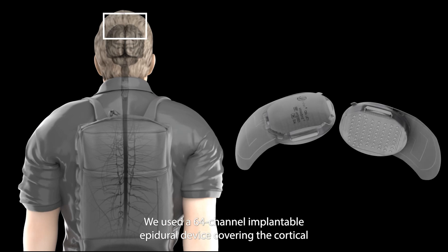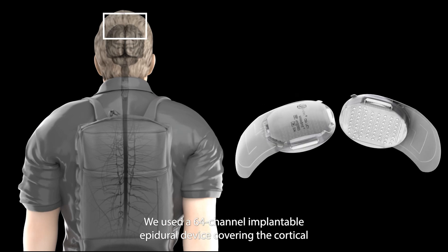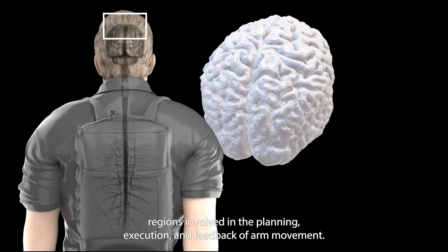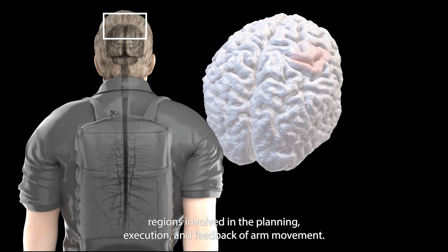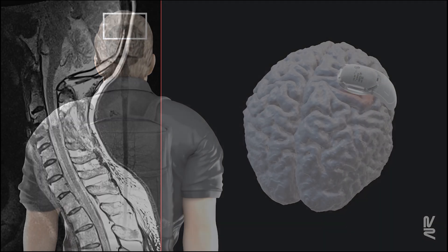To decode patients' intentions, we used a 64-channel implantable epidural device covering the cortical regions involved in the planning, execution and feedback of arm movement.